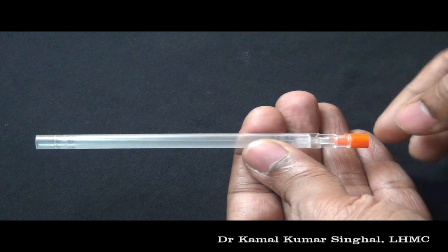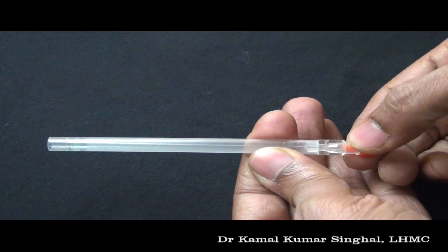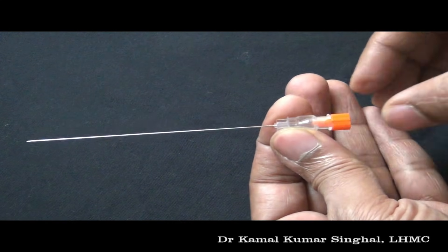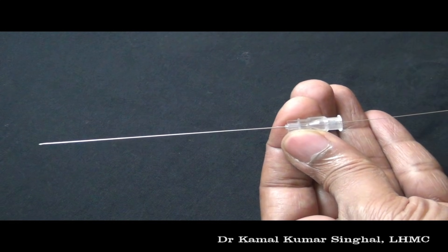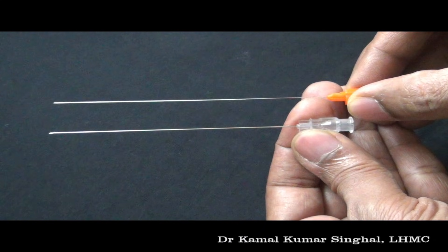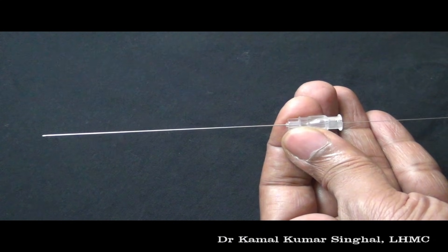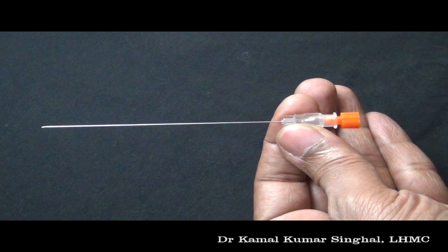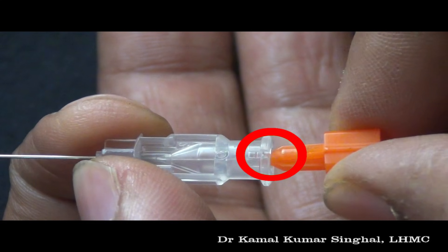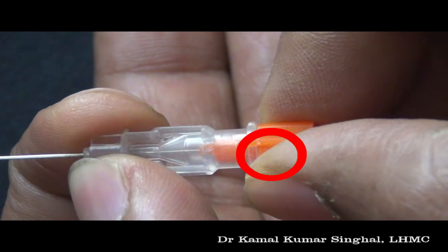This is the lumbar puncture needle. Once you remove the safety cap, you can see the needle. Inside this needle is a well-fitting stylet. The stylet is to be kept inside the needle when the lumbar puncture is being done. You can see a slot in the hub of the lumbar puncture needle where a projection from the stylet fits in.